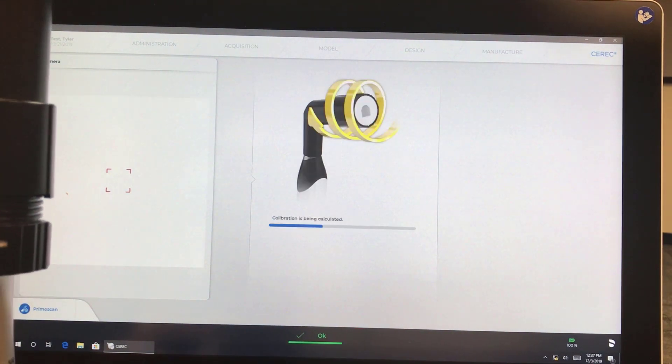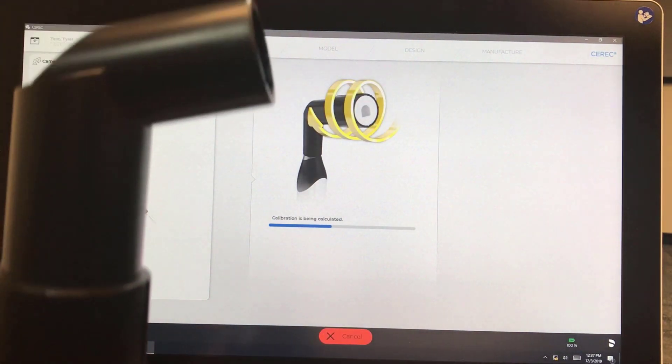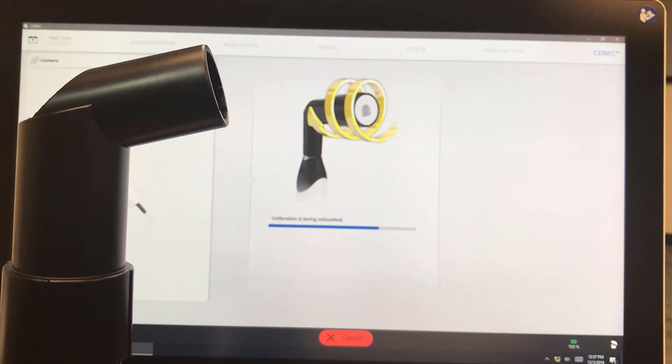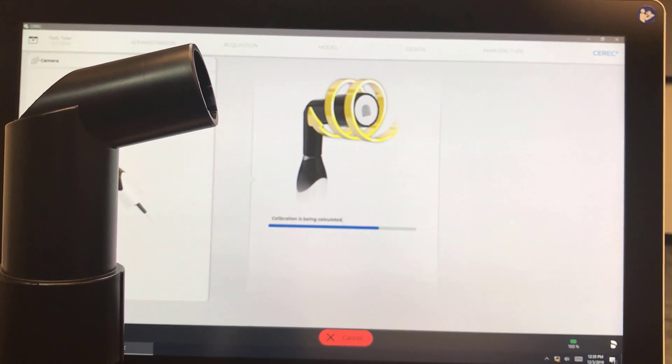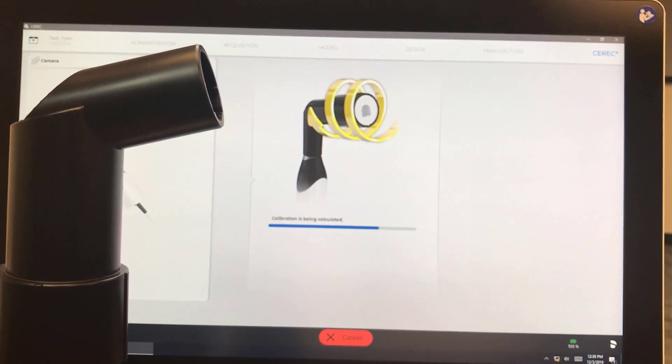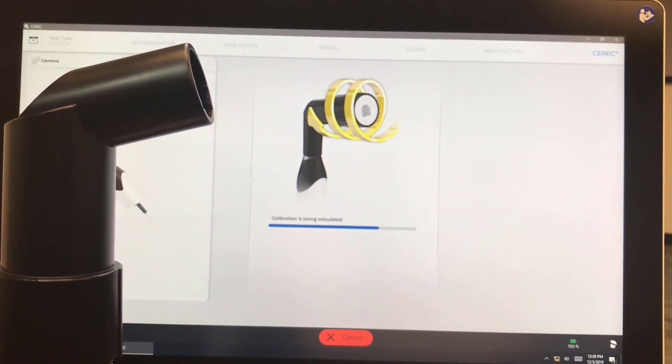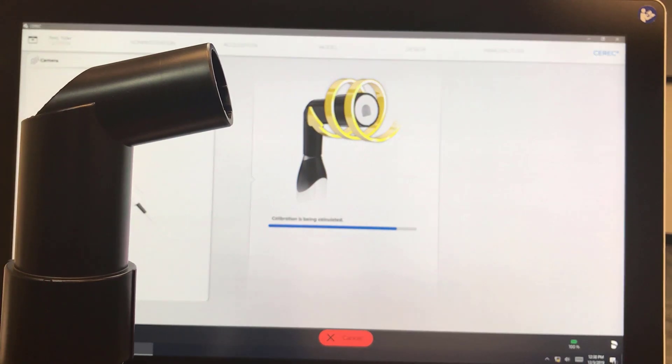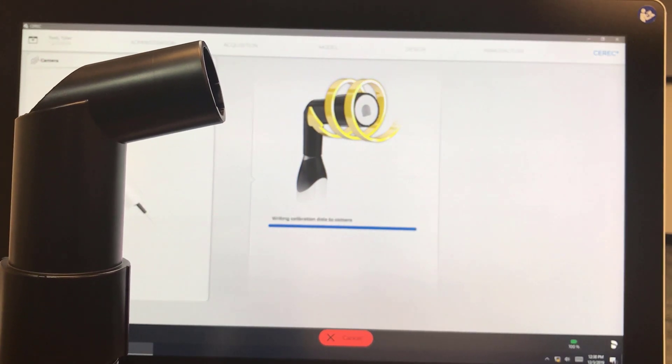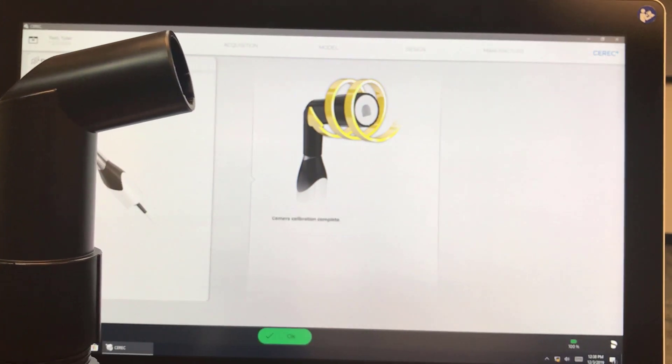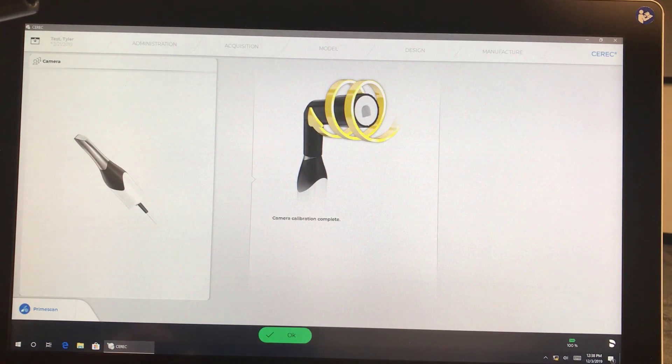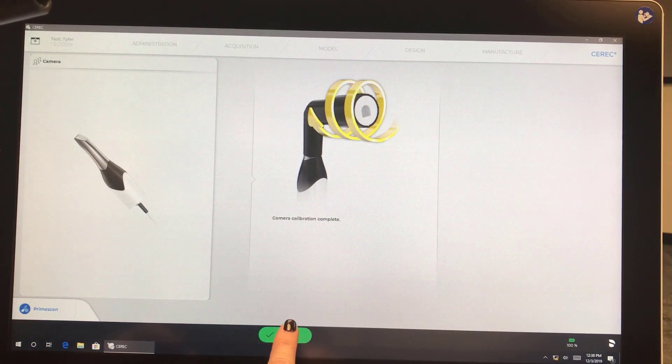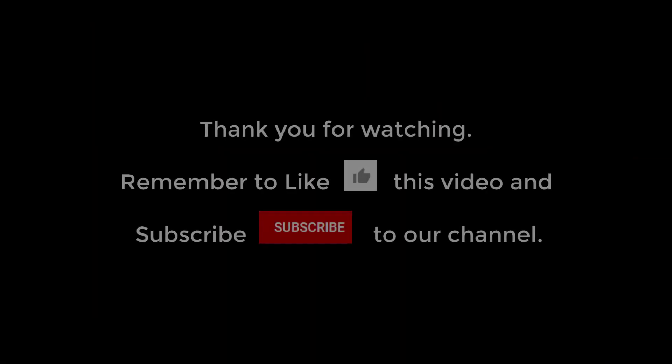So we want to keep holding the camera upright. Keep the calibration tool still mounted properly on the camera until the calibration is completed. And now the calibration is complete, we just have to hit OK. Thank you.